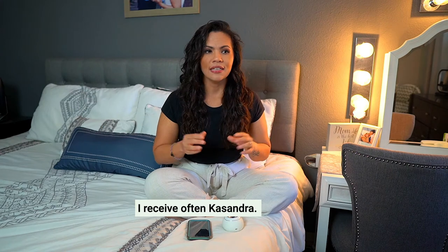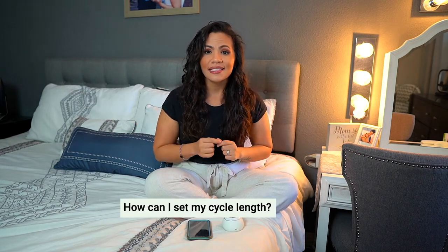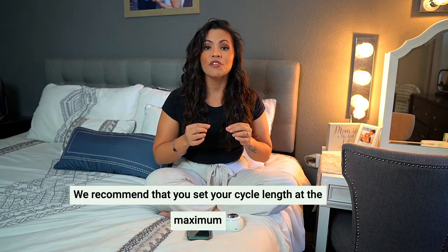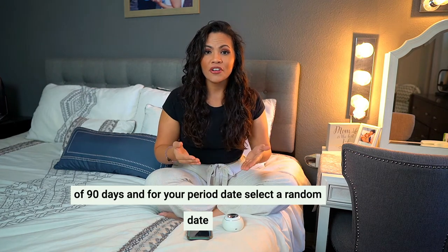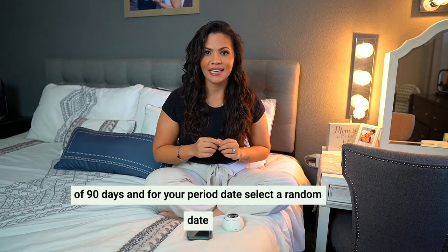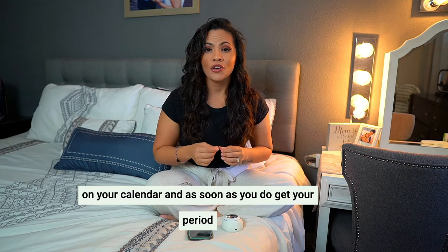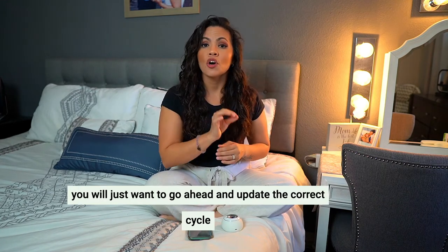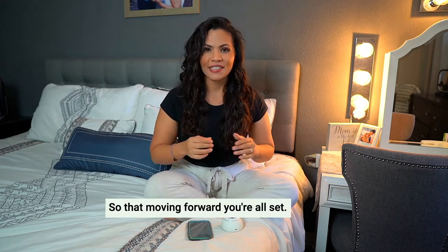A question I receive often: Cassandra, I have not had my period in a long time — how can I set my cycle length and my period date? In this case, we recommend that you set your cycle length at the maximum of 90 days. And for your period date, select a random date. Afterwards, you're going to want to follow your testing schedule that Mira will provide to you on your calendar. And as soon as you do get your period, you will just want to go ahead and update the correct cycle on the app so that moving forward, you're all set.